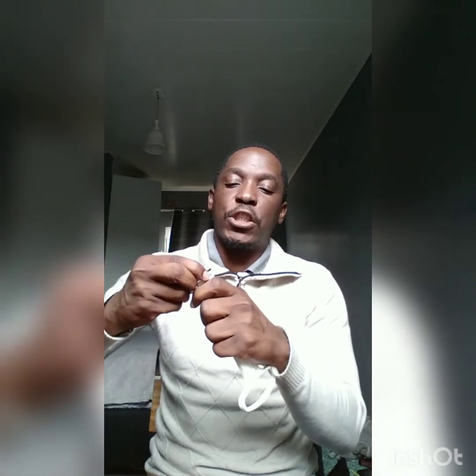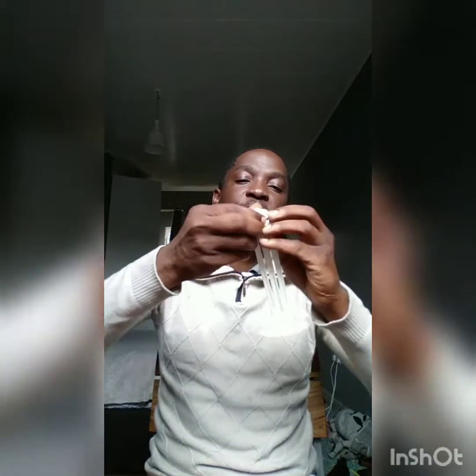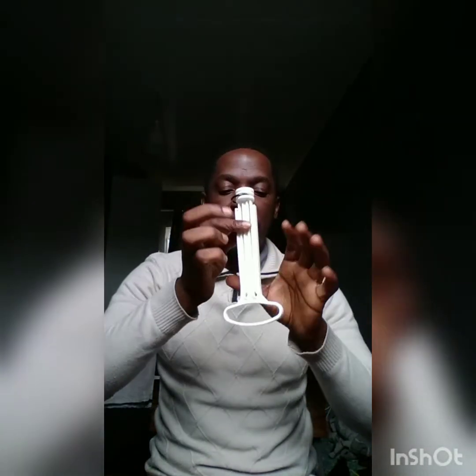There's a technique for removing the plunger O-ring: you push this part forward and just dislodge it. So you can see it's been dislodged. That is the technique for doing that. Next is the valve — the way to dismantle the valve is to start with the valve cup.